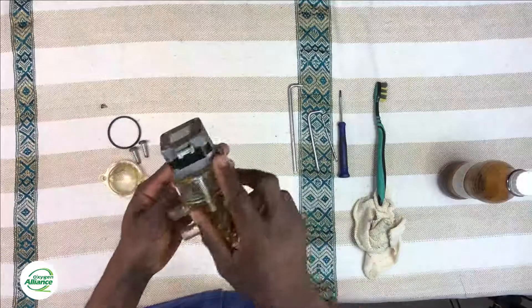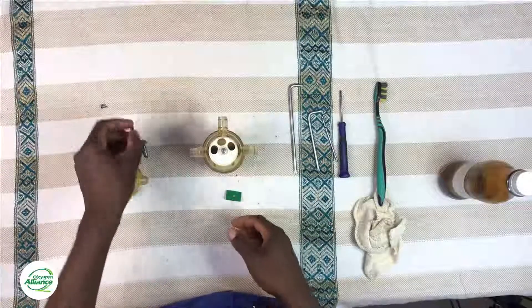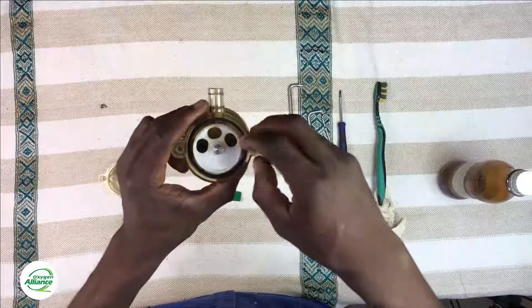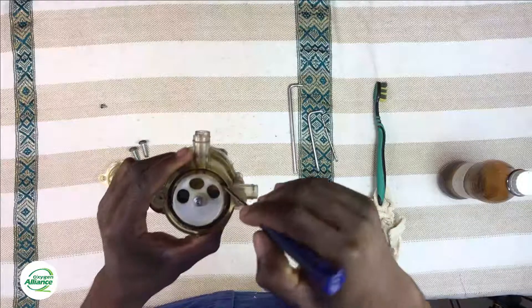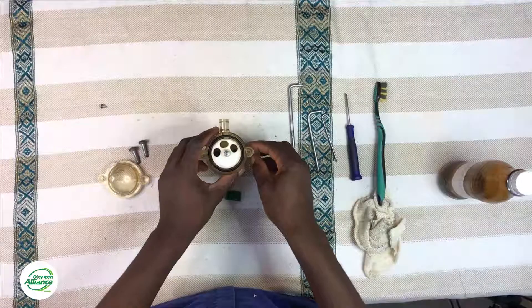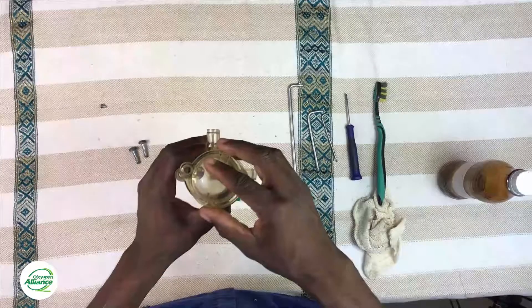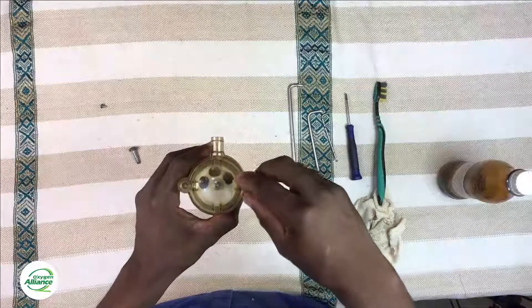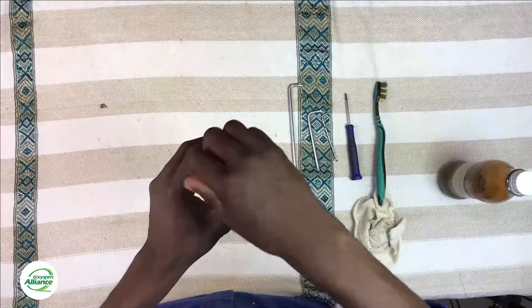After you screw down the stepper motor, move on to replacing the o-ring on the other side of the valve. Once the o-ring is in place, close it up — make sure the o-ring is sitting nicely in its position. Then replace the cover on the bottom side of the valve, remembering to use Torx key number 27 for these screws.